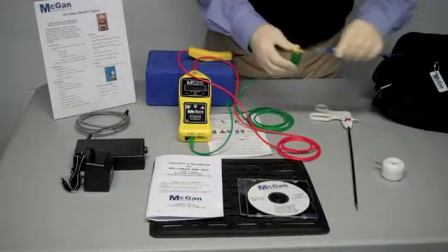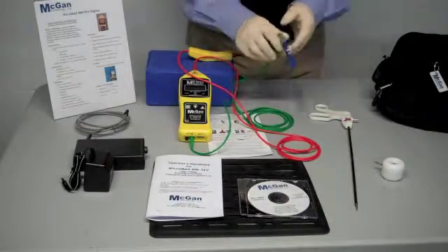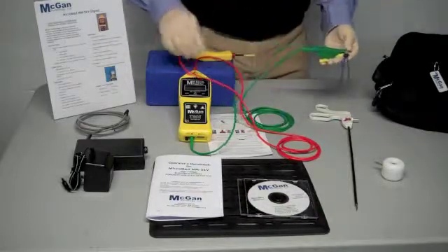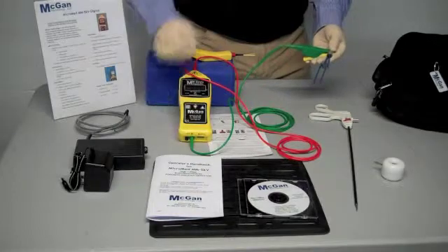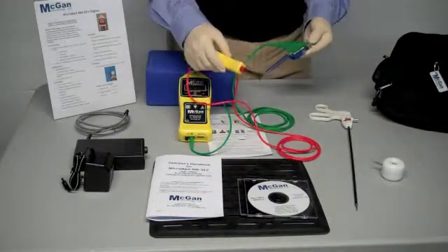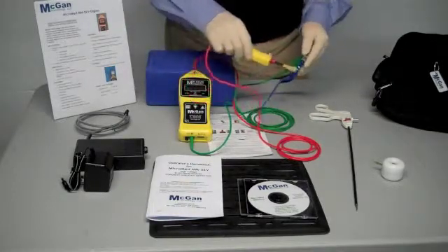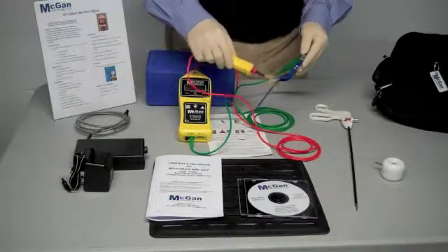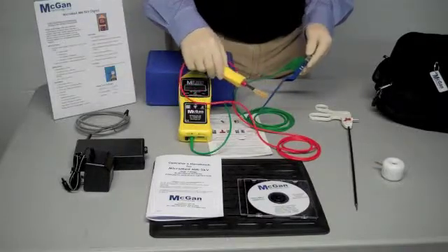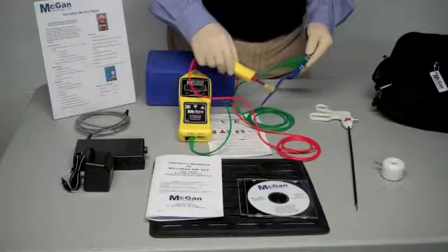We'll disconnect the laparoscopic instrument, and we'll put the bipolar instrument on, attaching the ground to the port. Turn the base unit back on. Take the brush electrode and go up each side of the unit to see if you find the pinhole. You'll see them and you'll hear the spark noise once that happens.